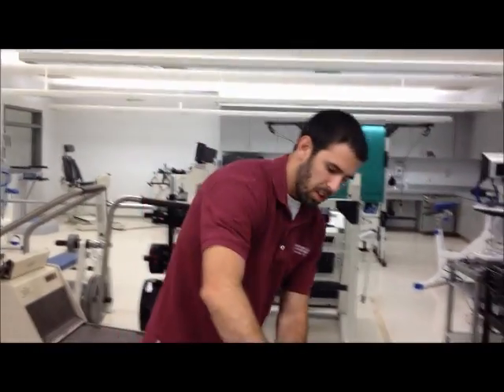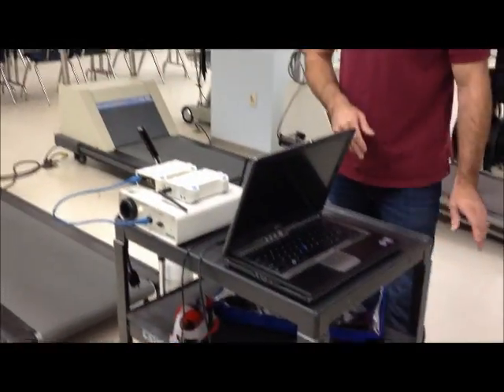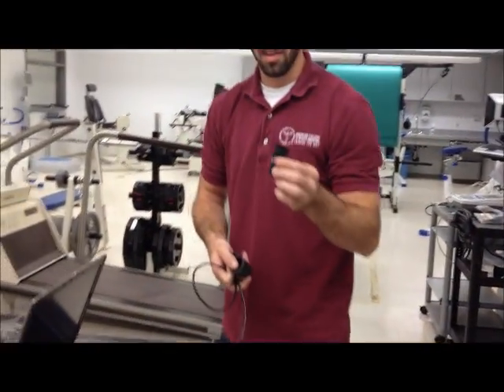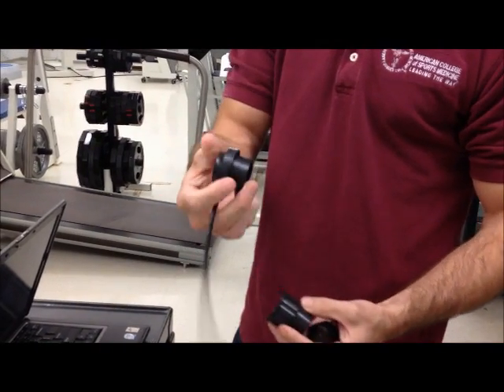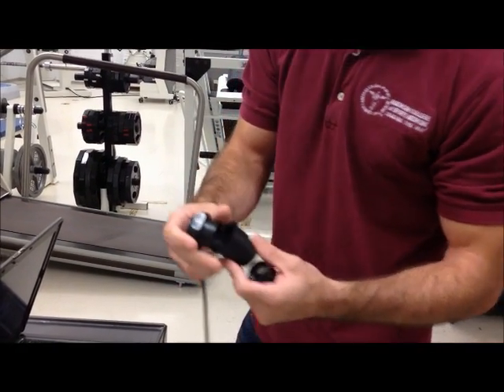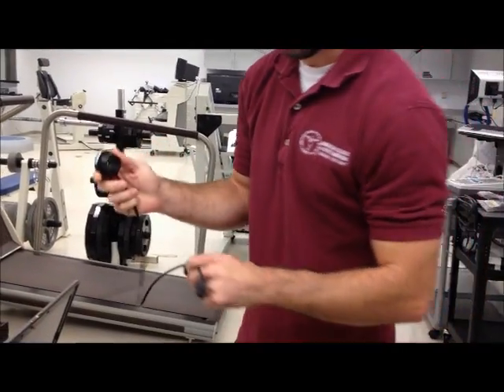So you want to turn the computer on and while that's turning on you can continue your setup. You have these three pieces: the air turbine, the inlet, and the mid piece that connects the two and also receives the flow data.